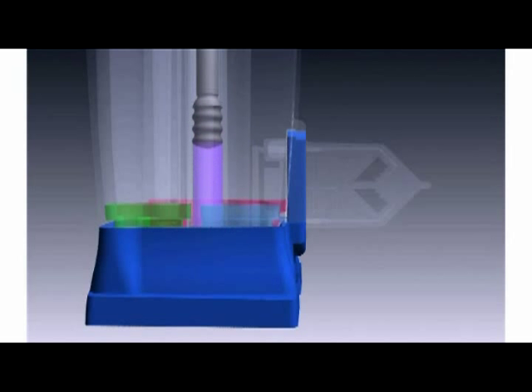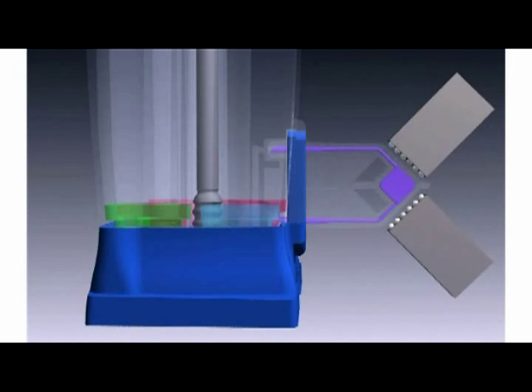The piston again draws the solution back to the central tube, rotates, and then dispenses the solution into the reaction chamber for a second round of thermocycling. Here we show six-color detection in process. At this point, the assay is complete.